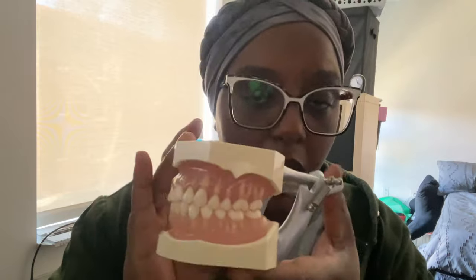We're jumping into probing, so I'll use my nice one that I bought. These teeth are removable. This one is definitely more useful for the anatomy aspect. The other day in anatomy we were being asked questions about tooth root morphology — like whether the mandibular first premolar normally has one or two roots — and it was nice to just pick it up and see.